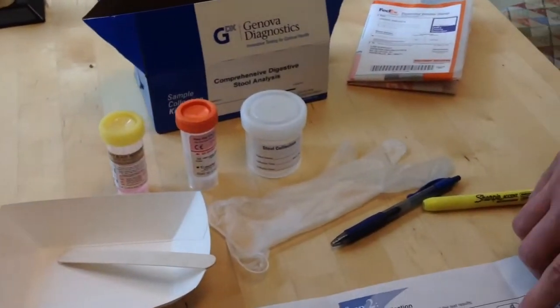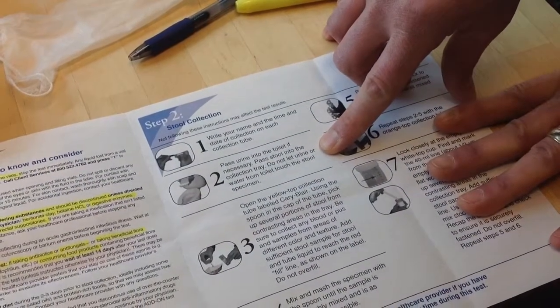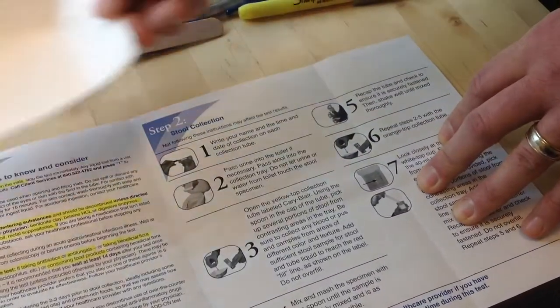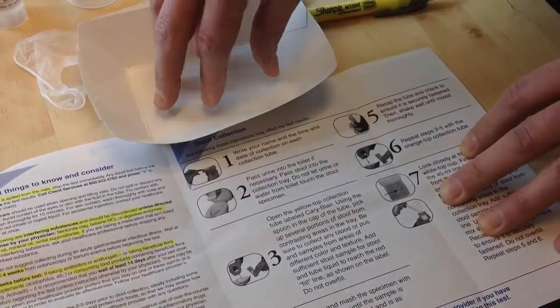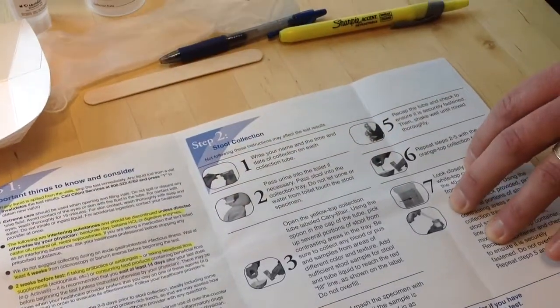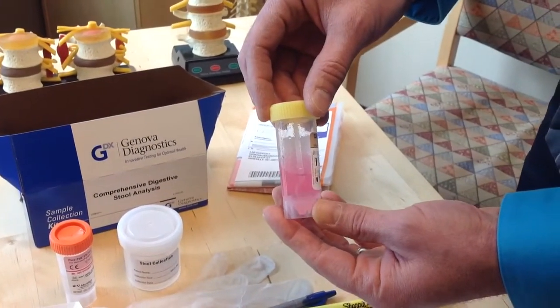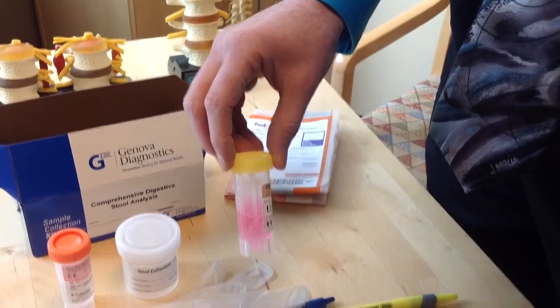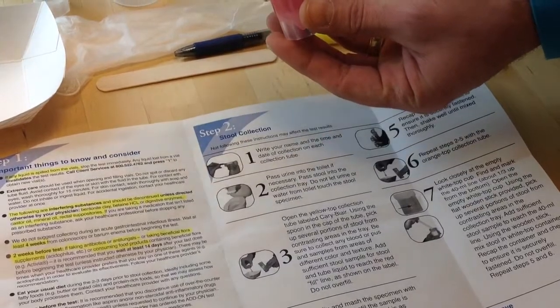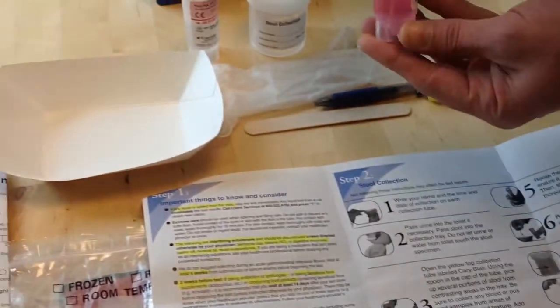Okay? Now when you get ready to actually collect the sample, you want to make sure that you don't contaminate the sample with any urine or with any water from the toilet. So you have to kind of pretend you're camping and use your little collection cup and collect the stool in the cup without any contamination. Okay? Then you open the tube and you'll notice the underside of the cap has a little spoon attached to it. So you take the spoon like it shows in the picture here, and you'll take a sample of the stool from different areas. If you see contrasting appearances within the collection container, you want to take a sample from the different areas and put it in the cup.